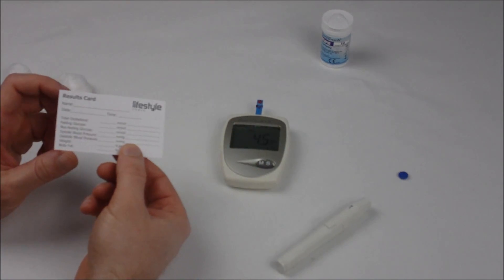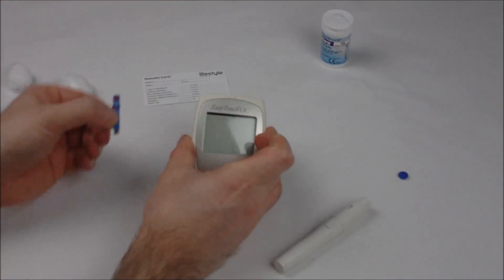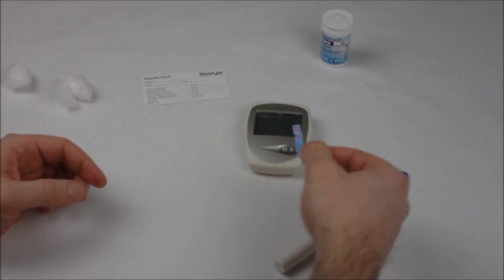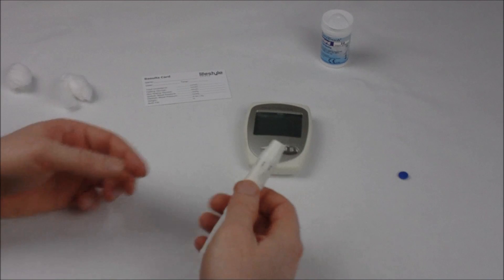Take out the test strip. That will turn off the monitor and discard the test strip.